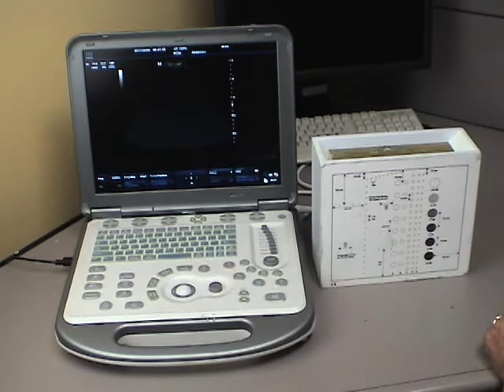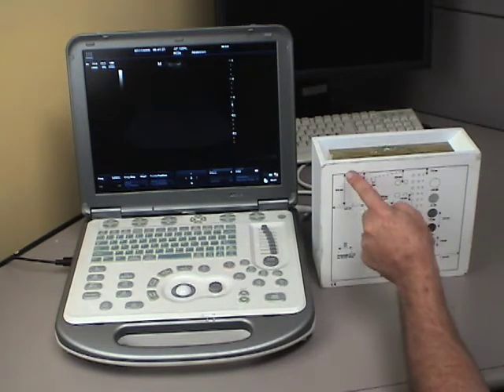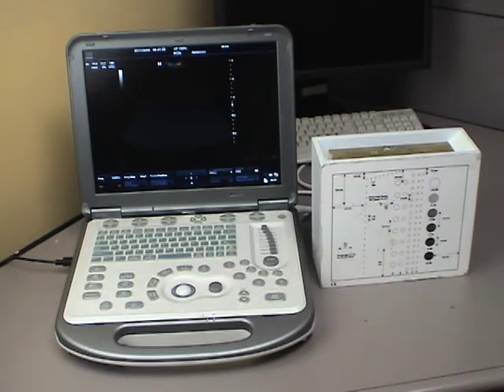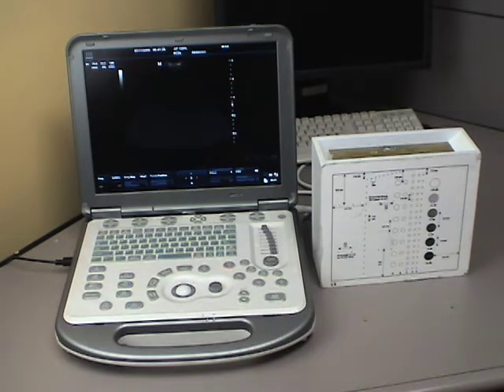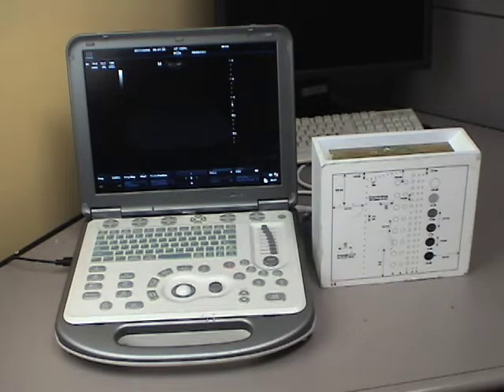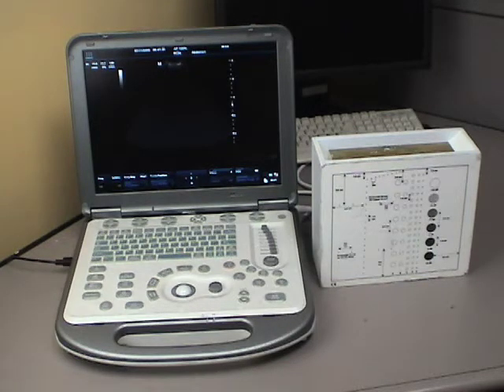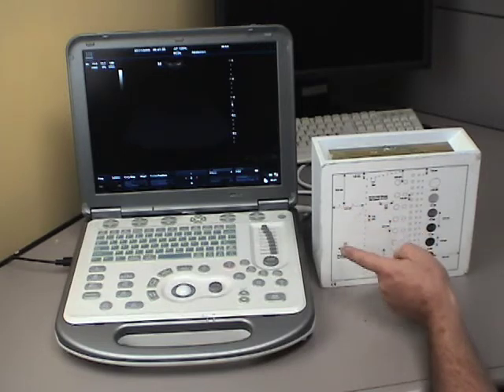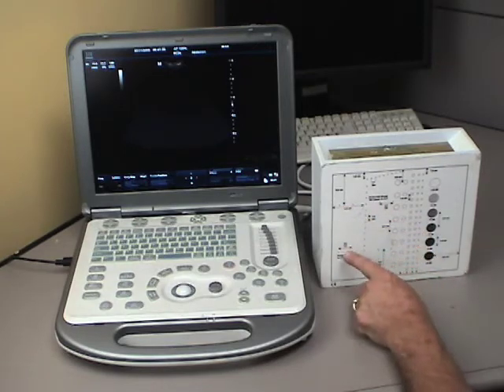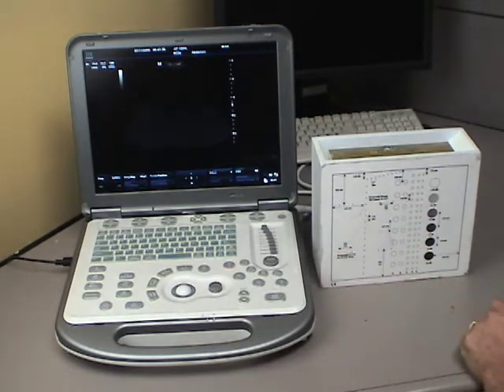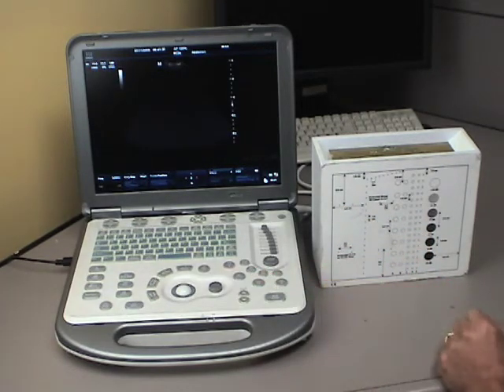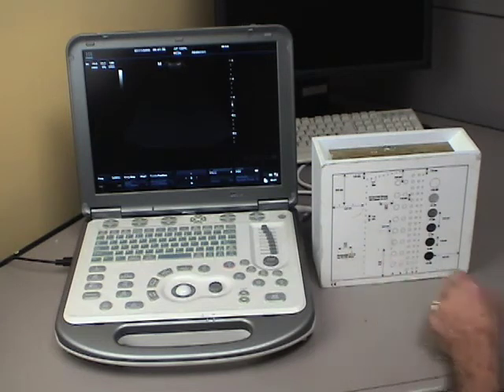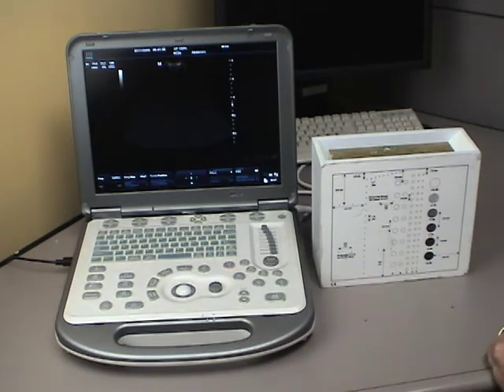In addition to that, we're going to check both the axial and the lateral measurements. When you go to make a measurement, whether it's to look at the size of a particular gland, to see the size of an occlusion or anything else, you want to know that that measurement's accurate. So there's wire markers at fixed distances in here, and they're labeled up here. We can go in, we'll actually make a measurement with the system and see if it matches up to that.